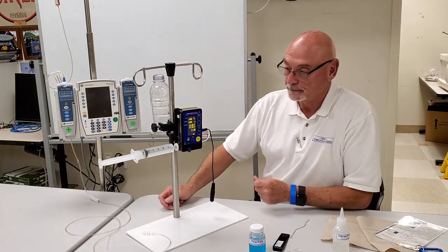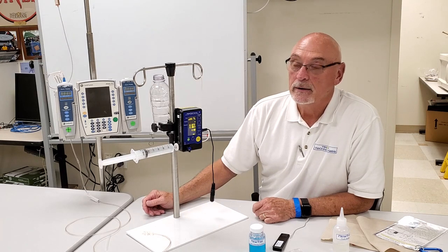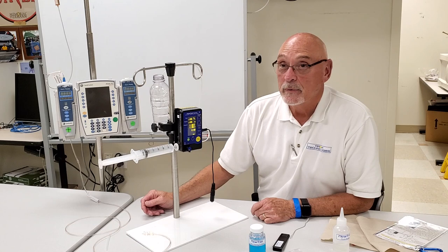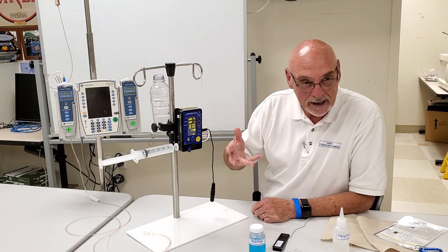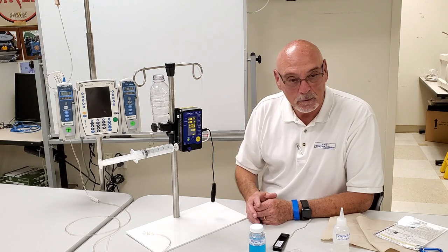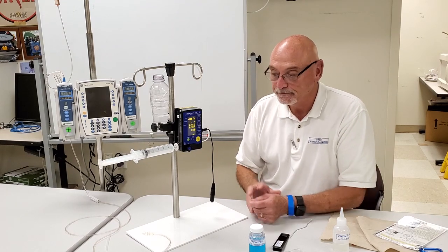If the previous priming method seems too complex, there's a much simpler method especially for field technicians. The unit comes with a large 60 mL BD syringe and you can prime with that. When priming with the IV pump, you want 800 to 900 milliliters per hour to get all the micro-bubbles out. The Flow Trax works on all types of infusion pumps — feeding pumps, syringe pumps, PCA pumps, high-volume pumps — and renders a one-percent reading on any volume from half a milliliter per hour to a thousand milliliters per hour.